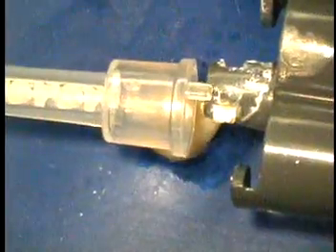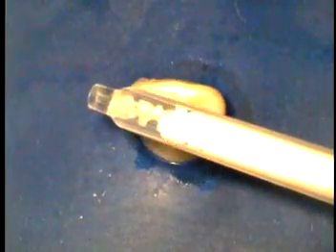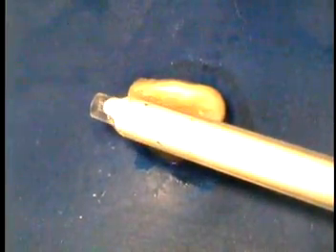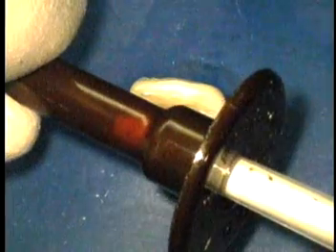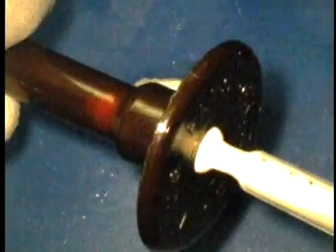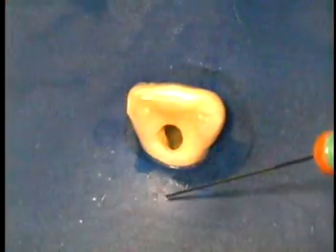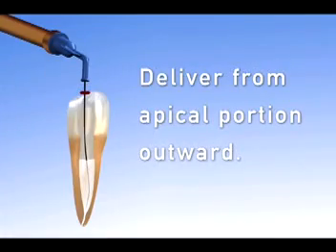We take the tip off the EndoRes, we express a little to make sure both sides are running, put the mixing tip on, and then we inject into the back of the skinny syringe. A very small amount is needed, but you need to make sure that you put EndoRes all the way to the flange so there is no air between the plunger and the EndoRes. Attach the Navi tip tightly, confirm that EndoRes is flowing.